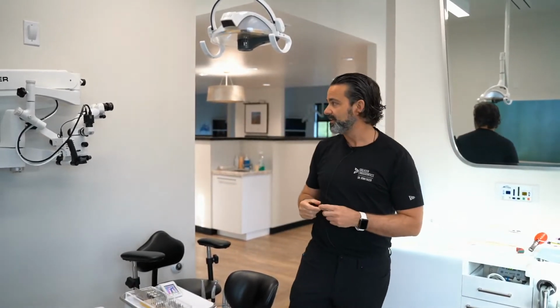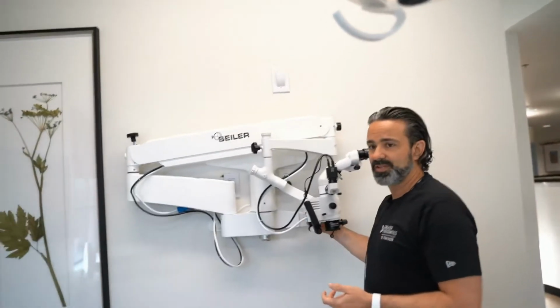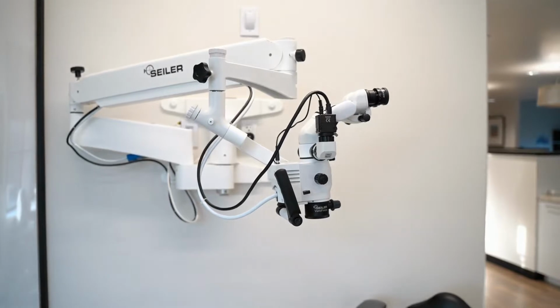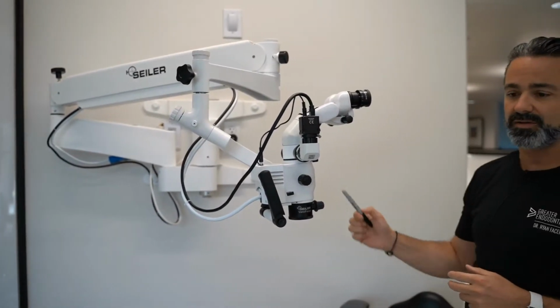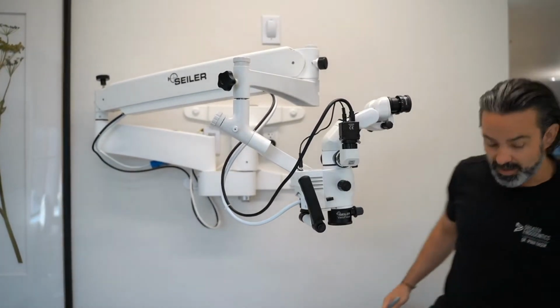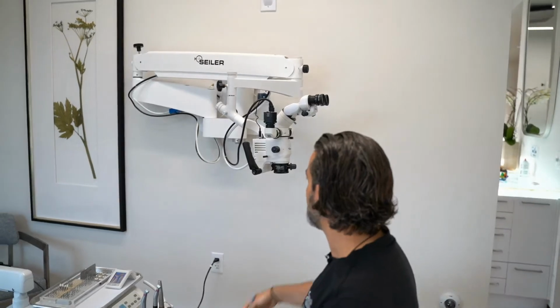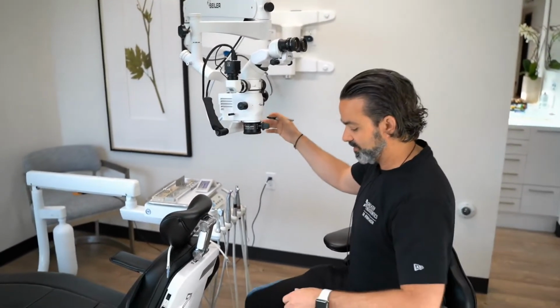Now the second thing is let's take a look at this microscope. Arms and cords and things, that's really going to be room length. There's always a ton of configurations that you can do with that. There are also configurations where people will go high mount, low mount. We talked about ceiling and floor. But I like it where when I'm sitting, it's just in my reach. If I'm working like this, I want to be able to reach and bring it over, and I can put my patient down, my pretend patient.